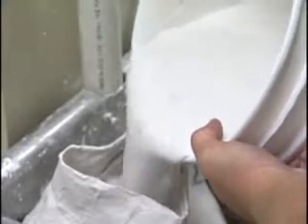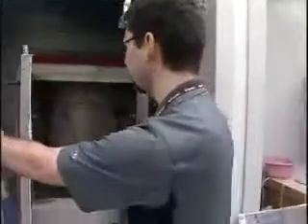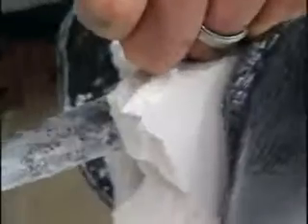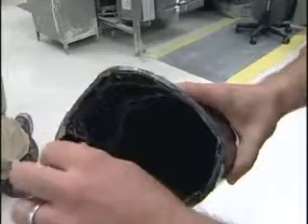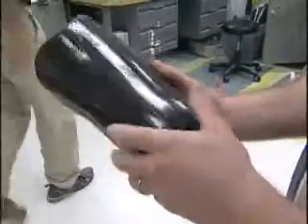The process begins with a plaster mold of the patient's limb. Then that mold is used to create a model, which is hand-shaped. The mold is covered in plastic and placed into an infrared oven — the infrared rays penetrate down into the plastic and soften it. Then the prosthetist cleans up the trim lines, mounts the components, installs a valve, and off the patient goes.